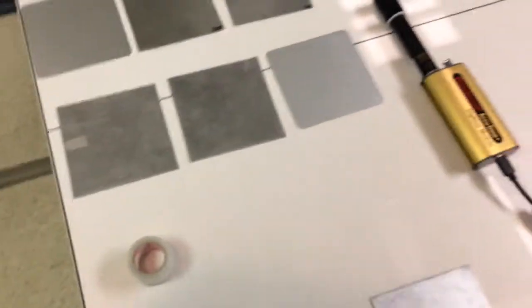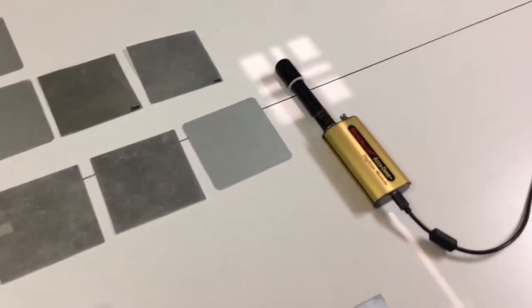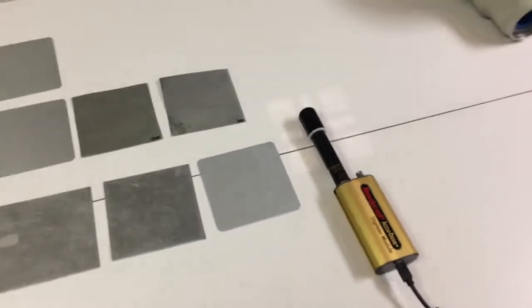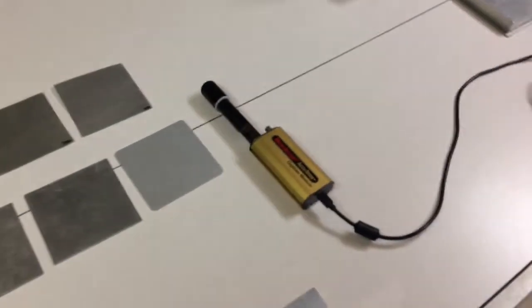1 millimeter, 2 millimeter, 5 millimeter. We're mostly going to focus on these. I should say that's a 0.1 millimeter, these are actually 1 millimeter down here. We're going to apply these different filters to the x-ray tube and see what amount of filtration results in us having half the amount of exposure.